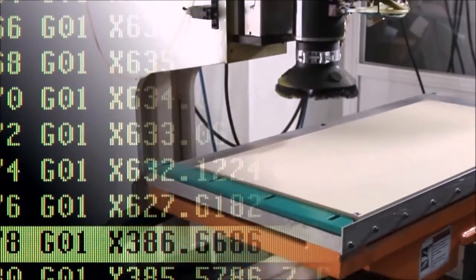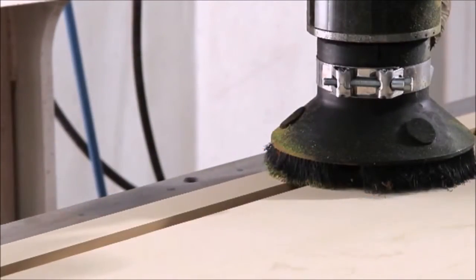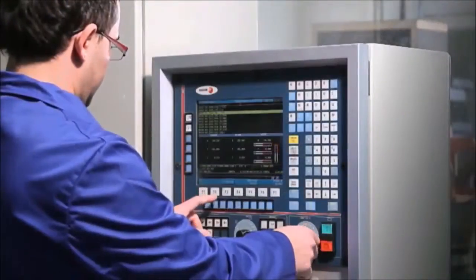Next, using CAM technology, we bring the three-dimensional shape to life on specialist orthotics building equipment. Depending on the shell materials, we can achieve this in two different ways.